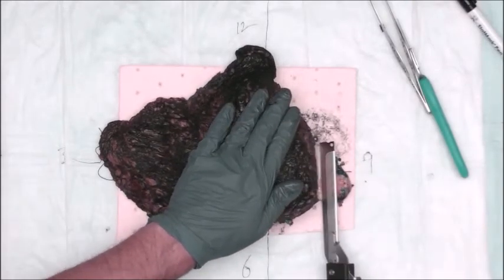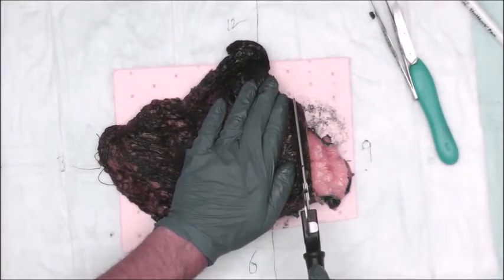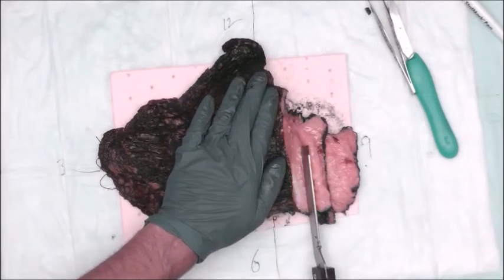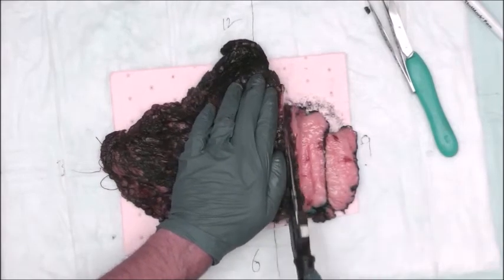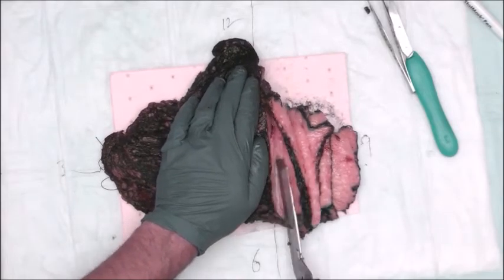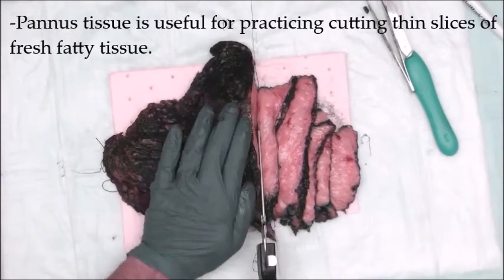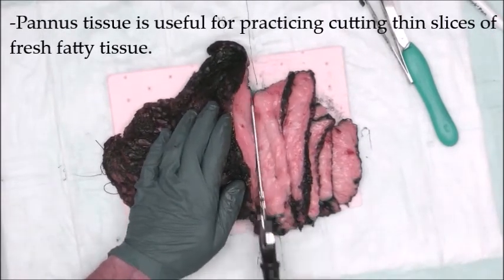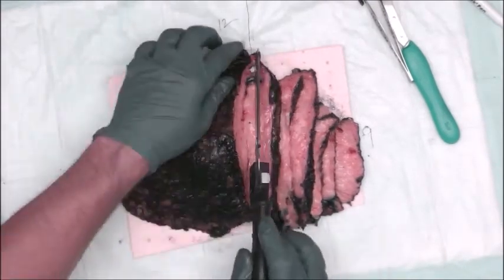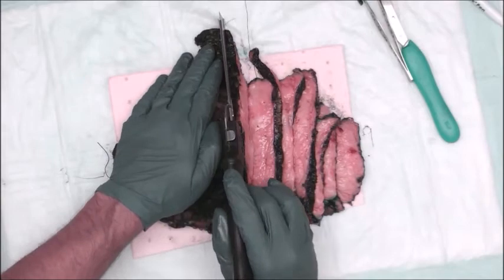So it's always good to make your sections nice and thin from the beginning to end. It makes your life easier and makes it more efficient in the end. Okay, so we're just going to bread loaf this from medial to lateral. Okay. And I kind of do this kind of seesaw kind of a cutting. Everybody has their own technique and way of doing these things.